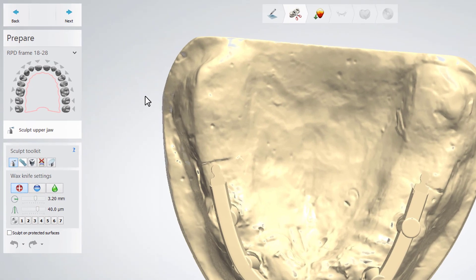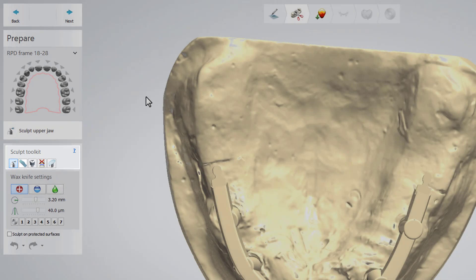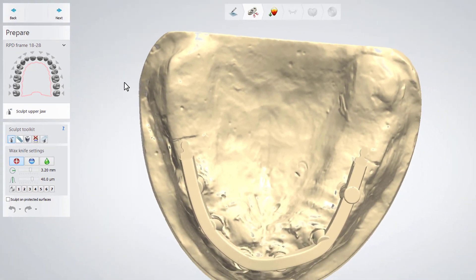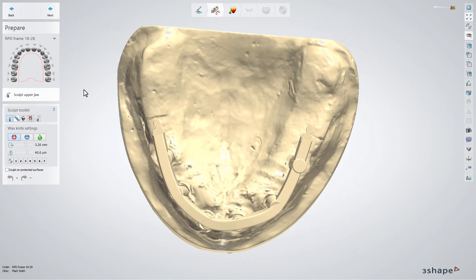In the Prepare step, you can use the options to modify the model, like the tooth extraction, the wax knife to remove any artifacts, and others. Since the bar has been designed with the slide attachments at the back, there is not enough space for the sleeve or plastic components which will fit into it — that needs to be fixed.